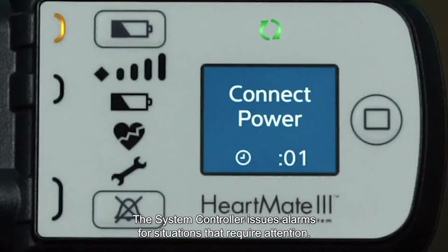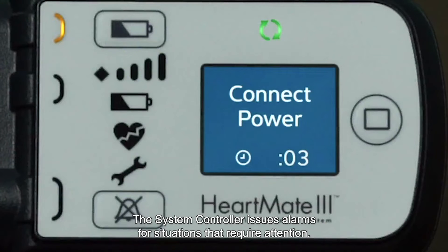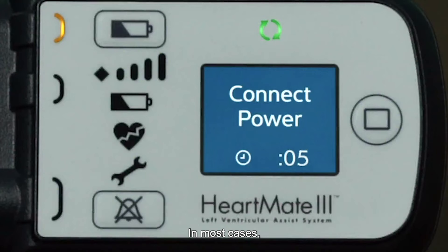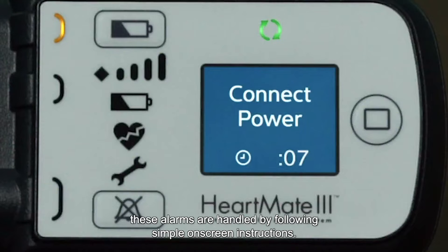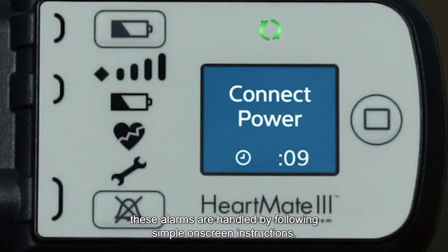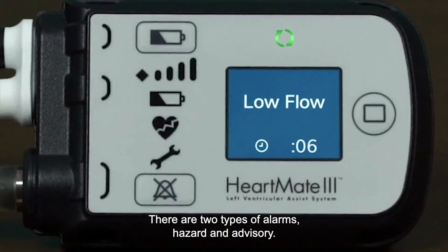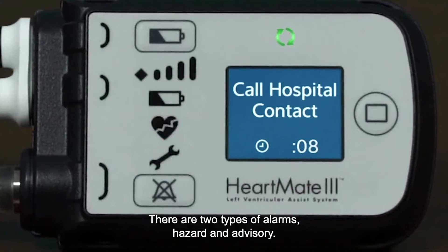The system controller issues alarms for situations that require attention. In most cases, these alarms are handled by following simple on-screen instructions. There are two types of alarms: hazard and advisory.